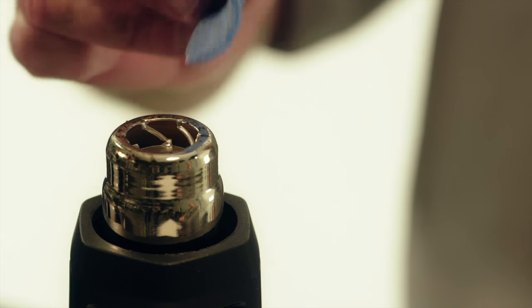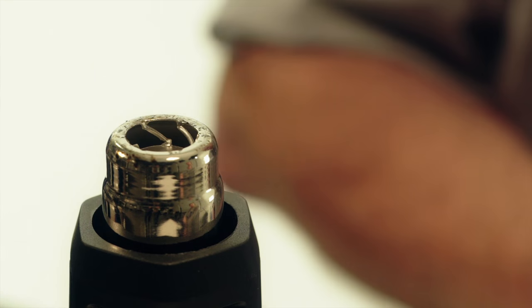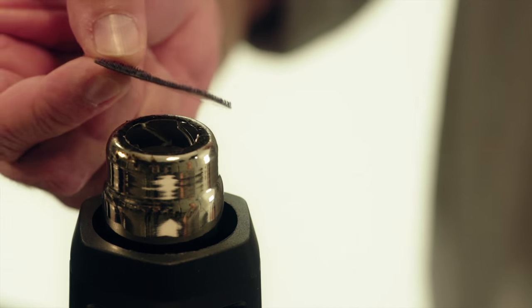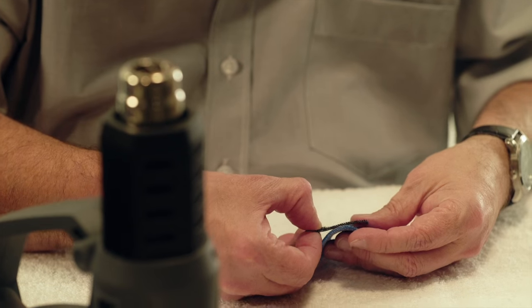Heat the orthosis on the dorsal side with a heat gun. Heat the self-adhesive side of the hook tape with a heat gun. Stick firmly together.